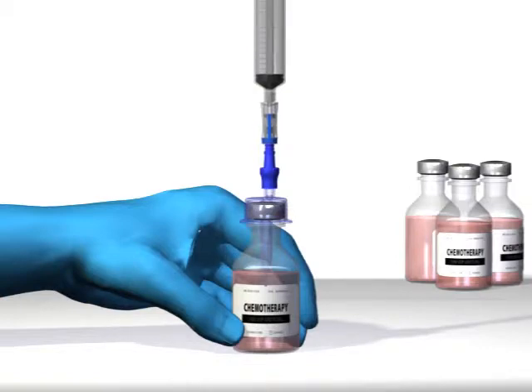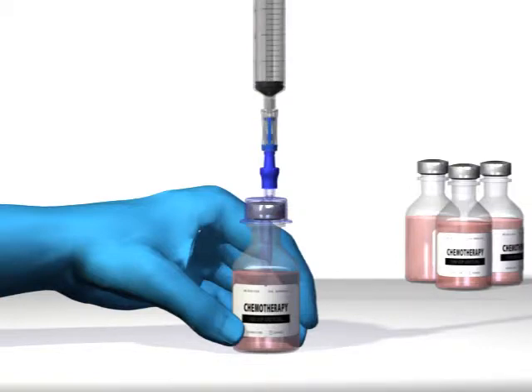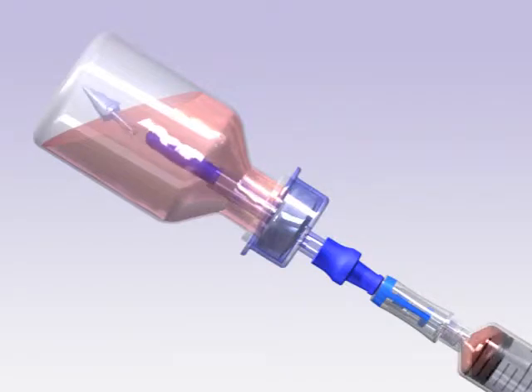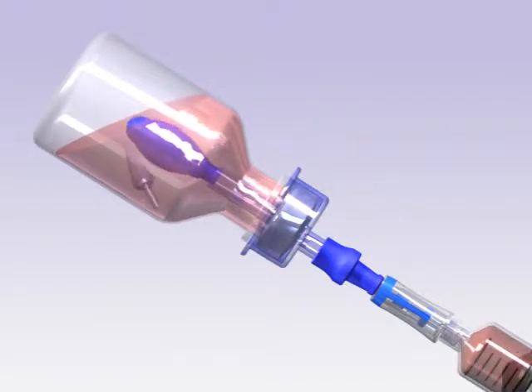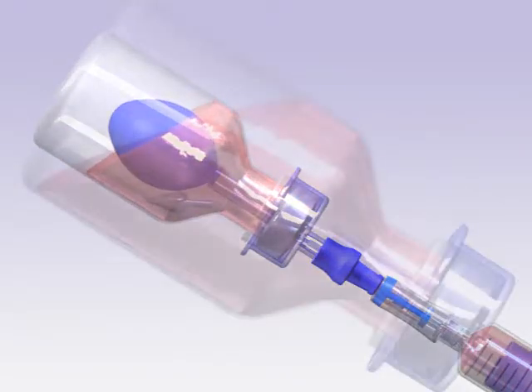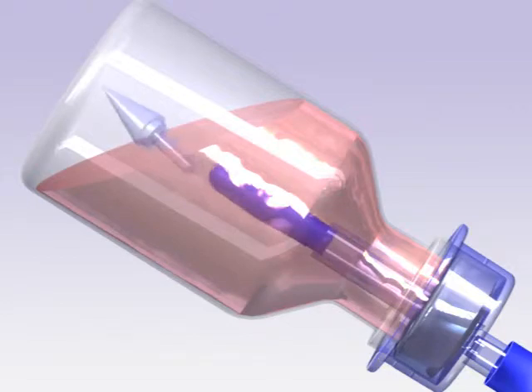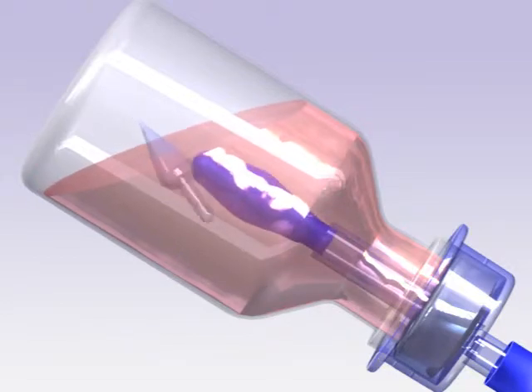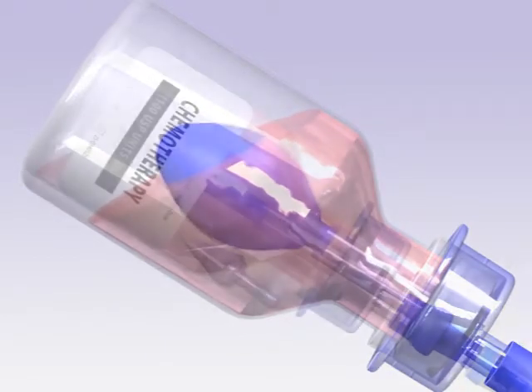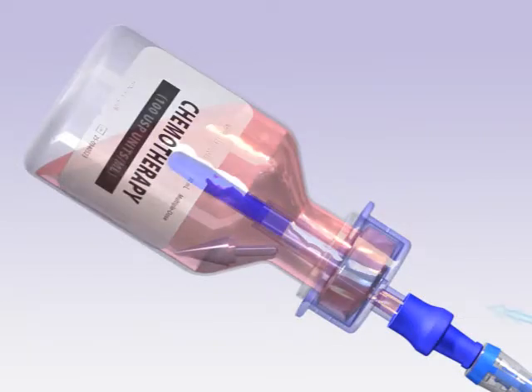Next, attach your syringe to the clave by pushing and twisting until tight. Then invert the vial and begin to aspirate your desired amount of drug. The insertion pin from the Genie will detach from the spike and the balloon will begin to inflate.